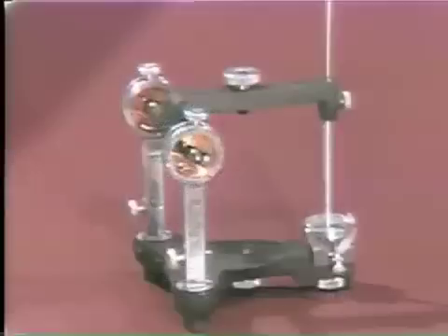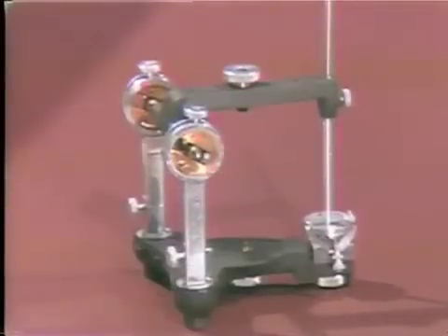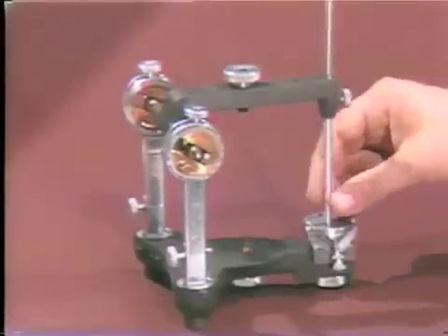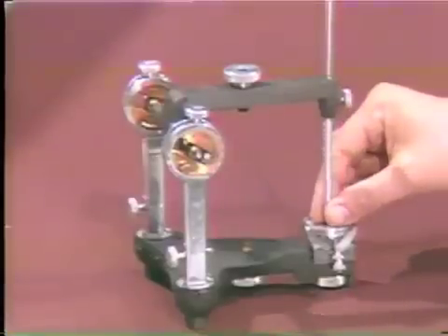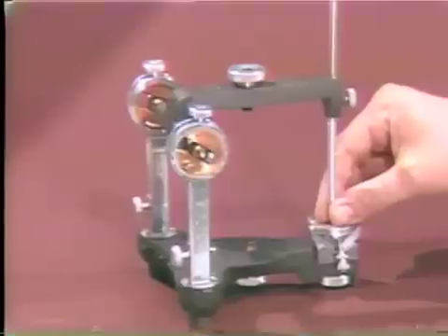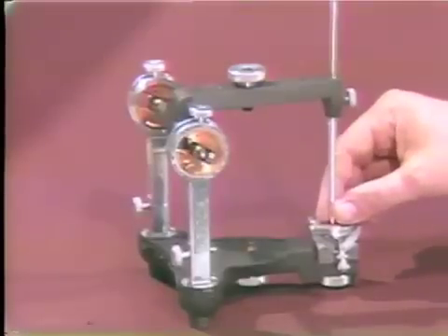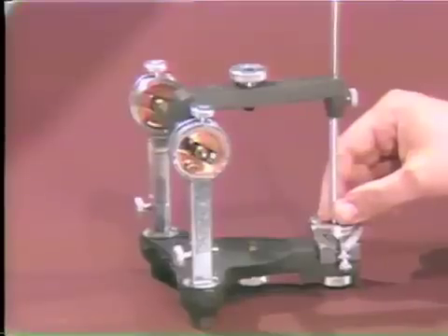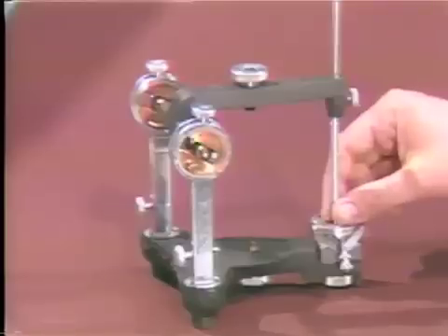These five factors, when interrelated, can be applied to the Hanau H2 articulator and thereby achieve mechanical articulation. Mechanical articulation is the predisposing factor to balanced occlusion, which we see in the patient.